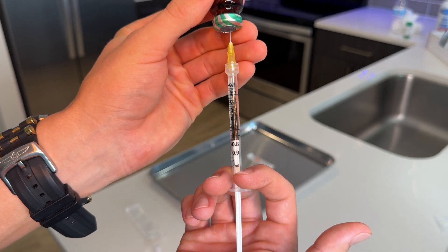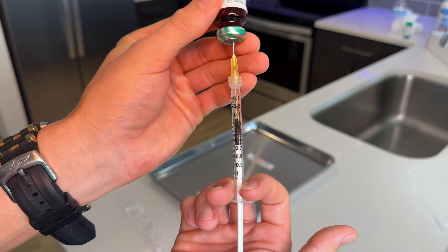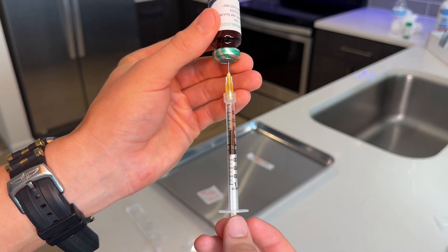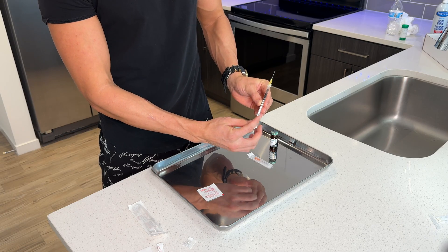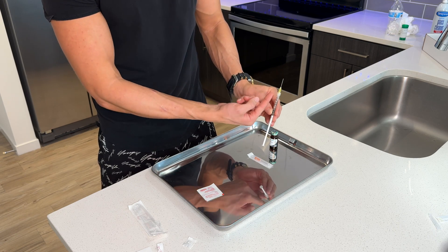After that, you're gonna wanna scoot the syringe up to the desired dosage. Our dosage today is 0.5. At this point, we do not have any air in our syringe and we're ready to draw the needle out of the bottle. Now that the proper dosage is inside the syringe, we're gonna pull back to empty the tip of the needle. Then we're gonna replace the drawing needle with the injection needle.